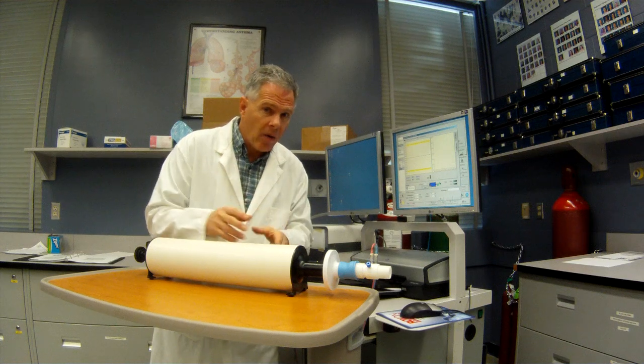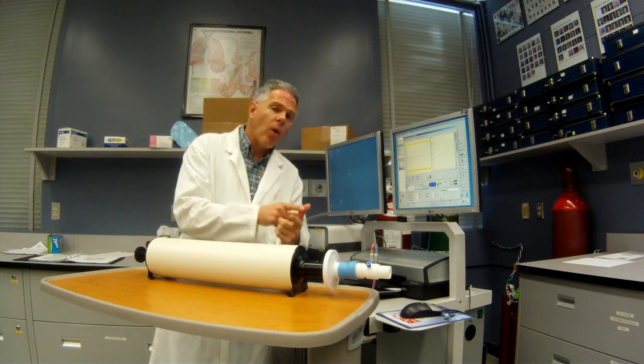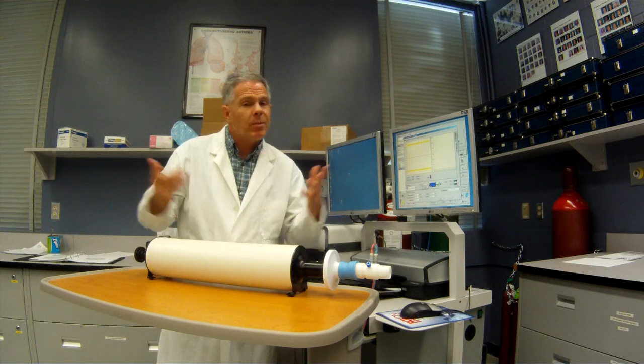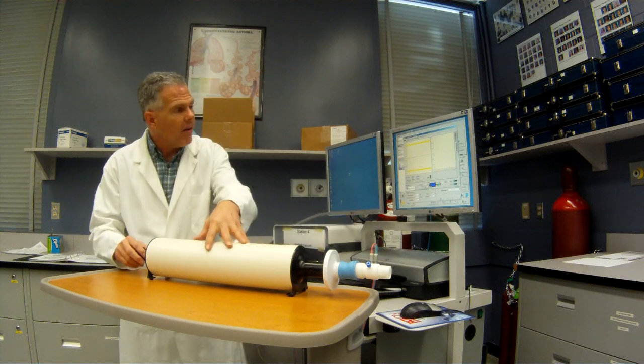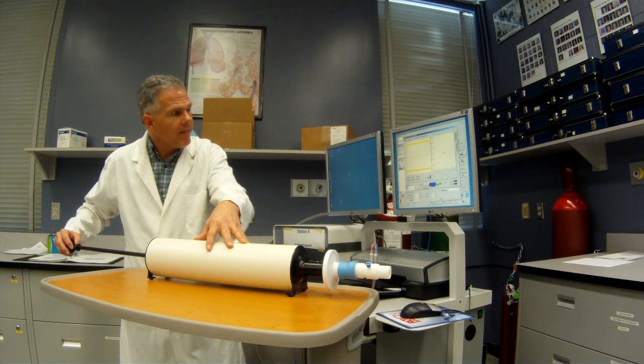So we just have to know now that we've got to do low, medium, and high flow rates. So low flow rates are about 1 liter per second. Medium flow rates about 5 to 6. High flow rates about 8 to 10 liters per second. So let's try this now. It always ignores our first strokes. So there's my... Just nice, gentle, even strokes now.